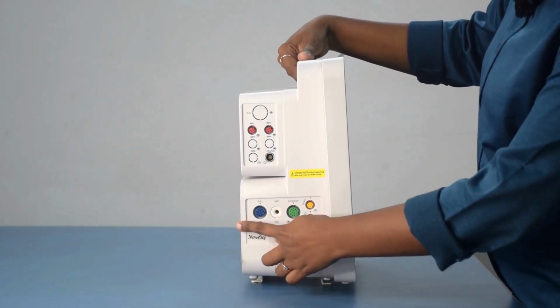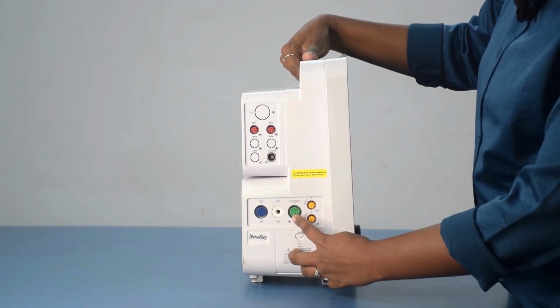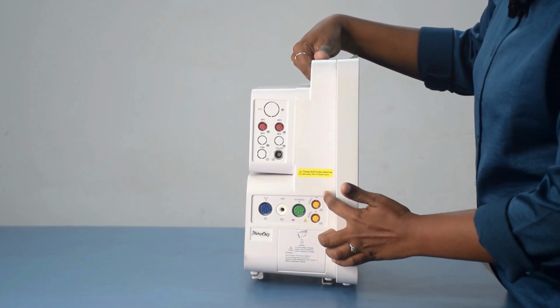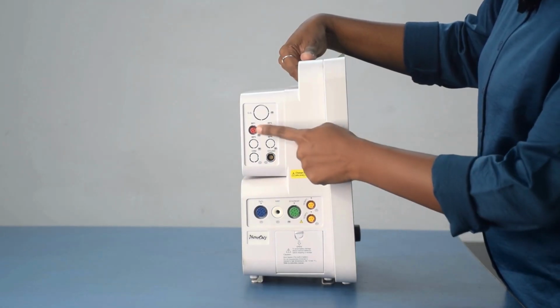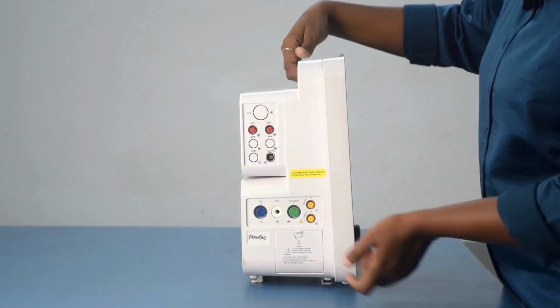This is a pre-configured basic configuration of SpO2, NIBP, ECG, 5-lead, 3-lead, and it is upgradable to 12 leads, dual temperature. And we have CSM cerebral state monitoring, CO2 AGM, dual IBP, and cardiac output.